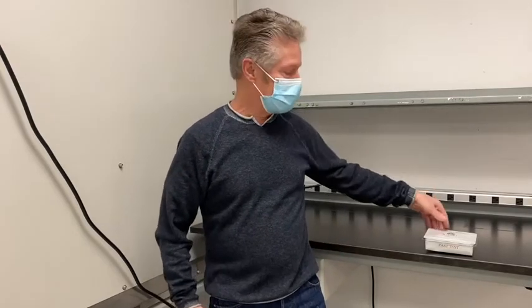Today, I'd like to introduce you to a new product that has just been developed at KBMO Diagnostics. It's a rapid test that measures antibodies against foods. It has a control protein, and it measures eggs, milk, and wheat using a rapid test format.